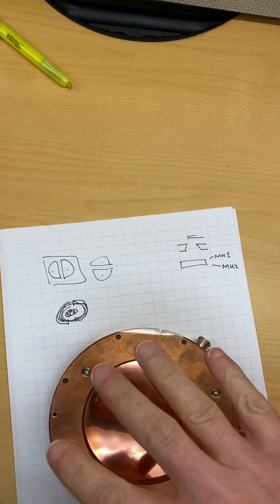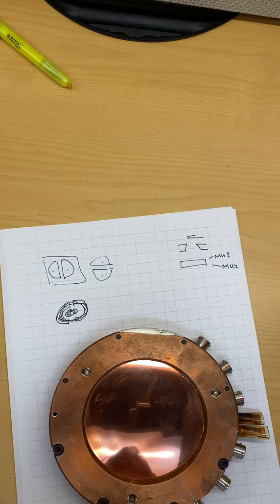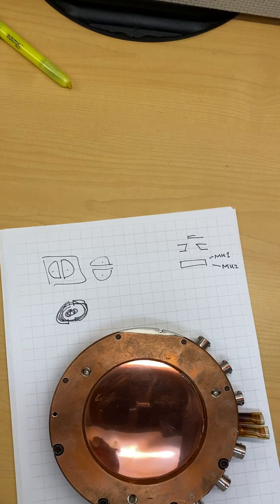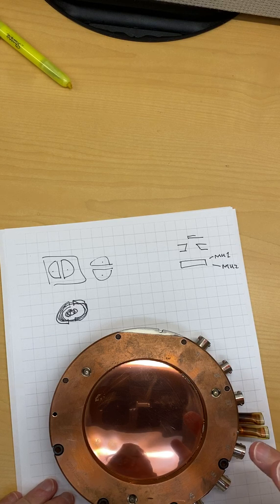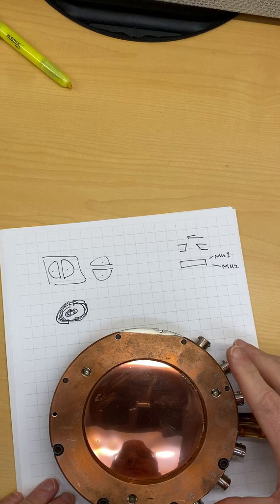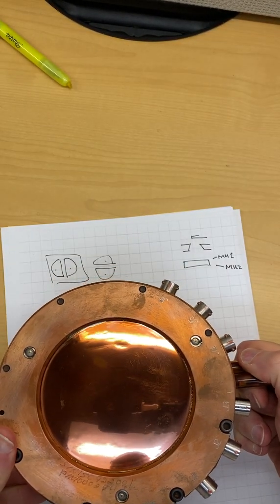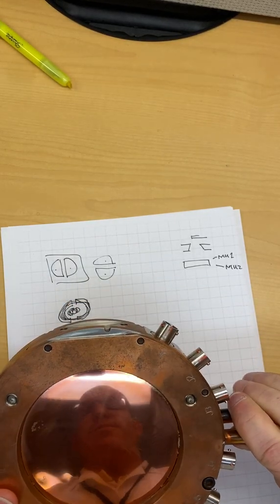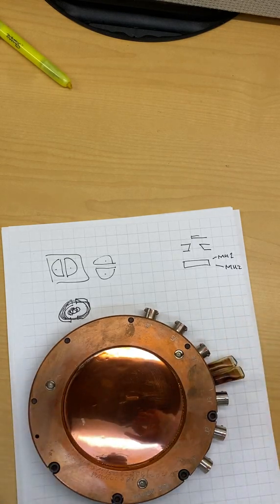When you do the morning QA it will fail. Like if your morning output is off by 10 or 20 percent, that machine's not going to pass morning QA. It's not going to pass monthly QA. You're going to know immediately that that chamber is no longer sealed. And so, you know, it's a really good safety check that the machine is operating properly with this sealed ion chamber. So that is a modern monitor unit chamber used to control radiotherapy beams.